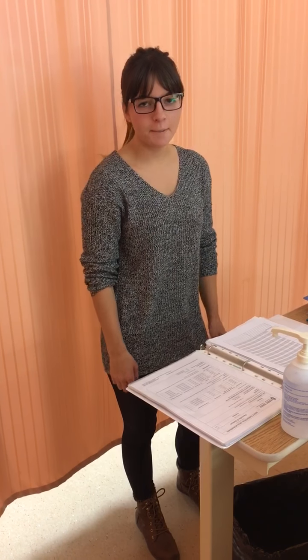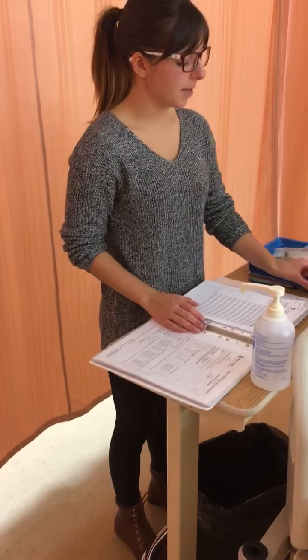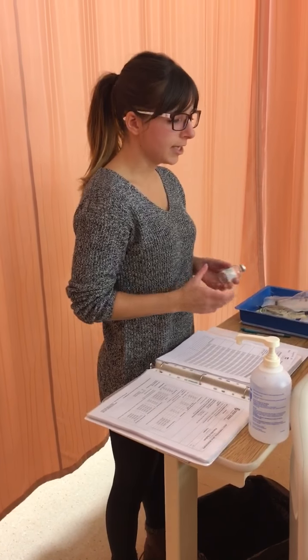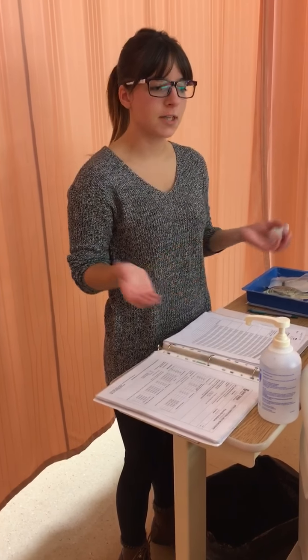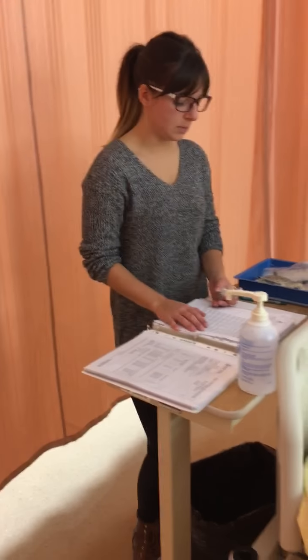My name is Lene. I'm going to be demonstrating how to reconstitute a med as well as administer that medication through a CIVA pump. Okay, so I'm going to first begin by grabbing my medication from the Pyxis machine. Ideally, we would do our first med check at the Pyxis machine, but for this demo, I'm just going to be doing it right at this table because I have all my supplies with me.